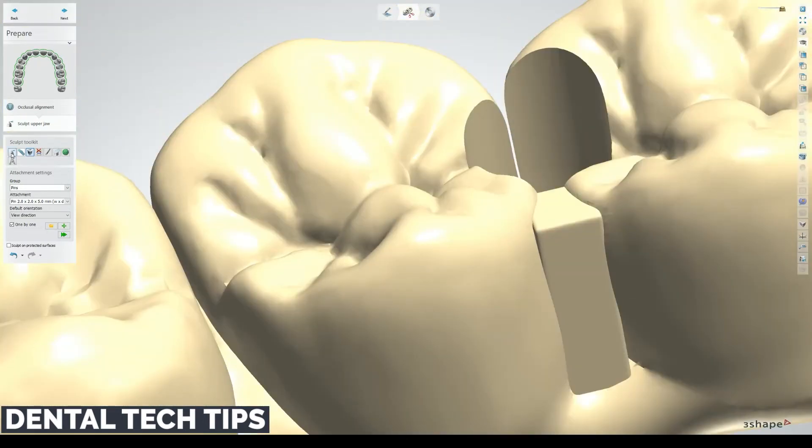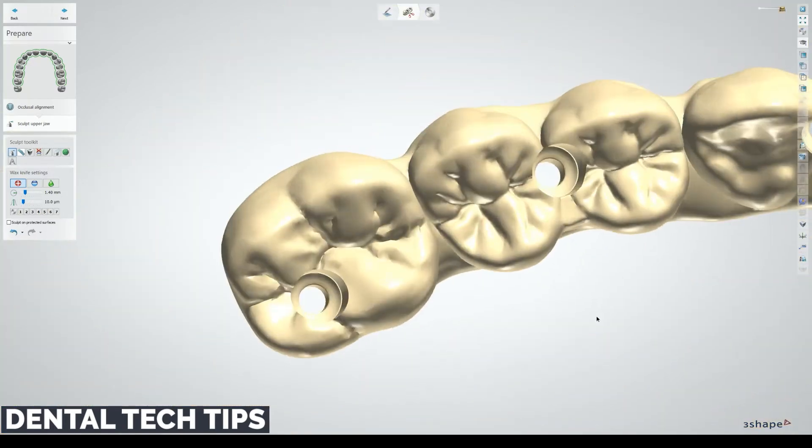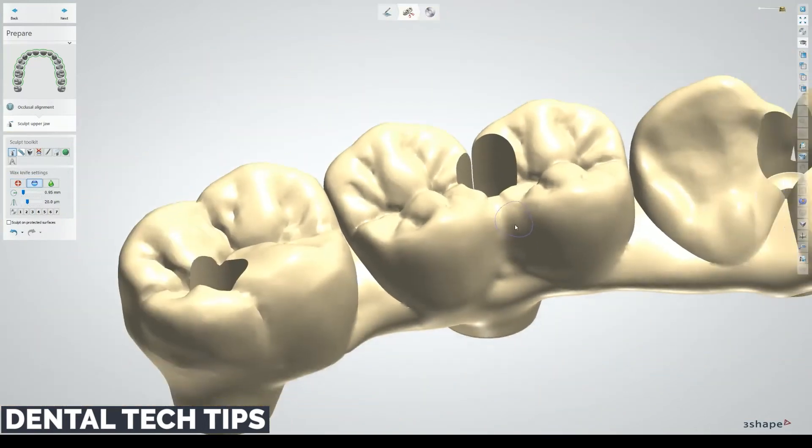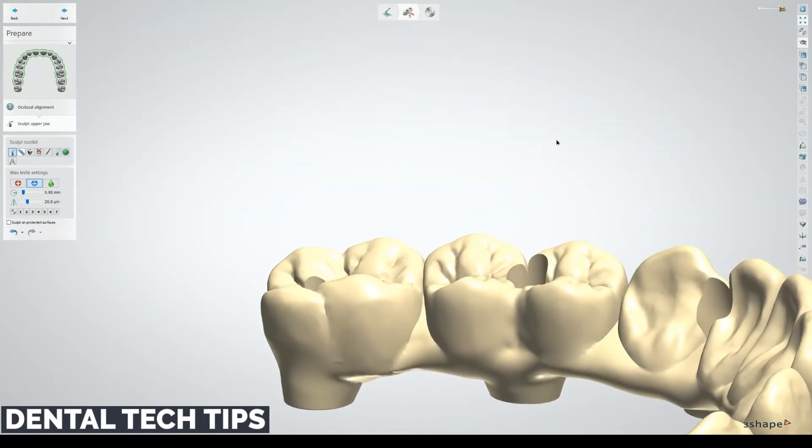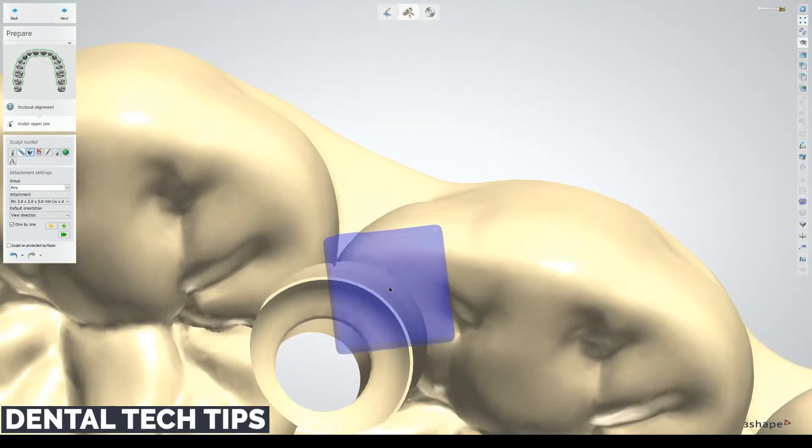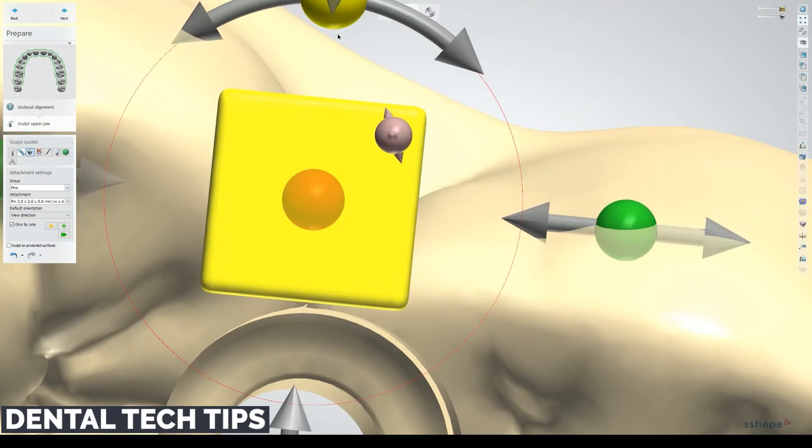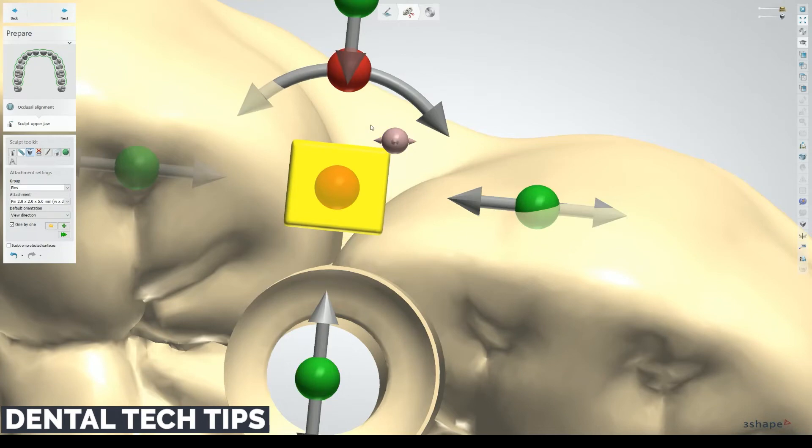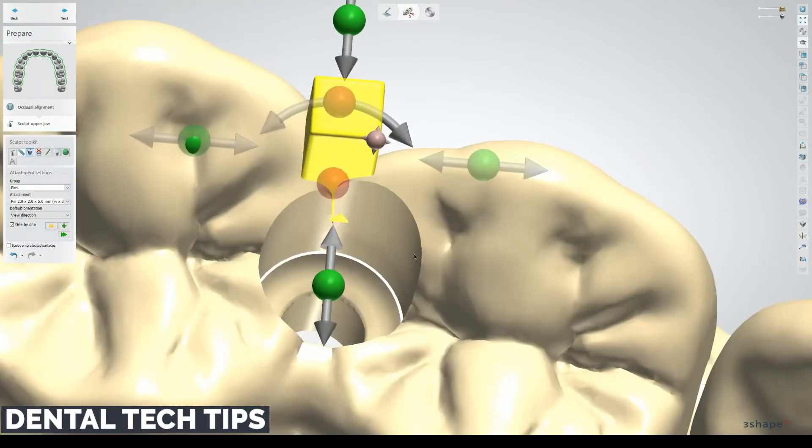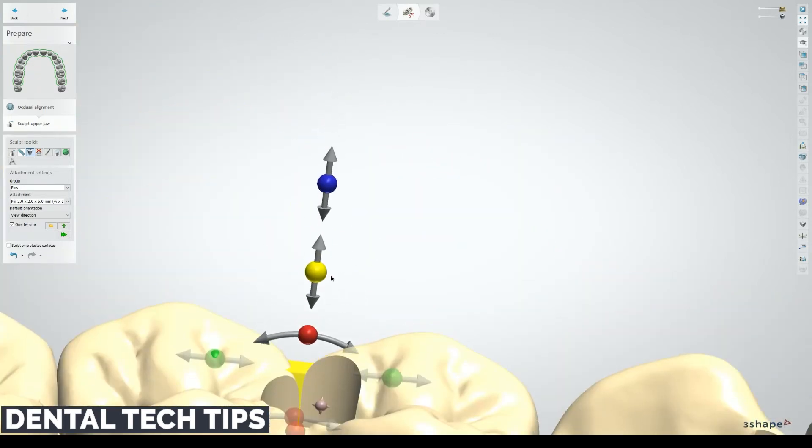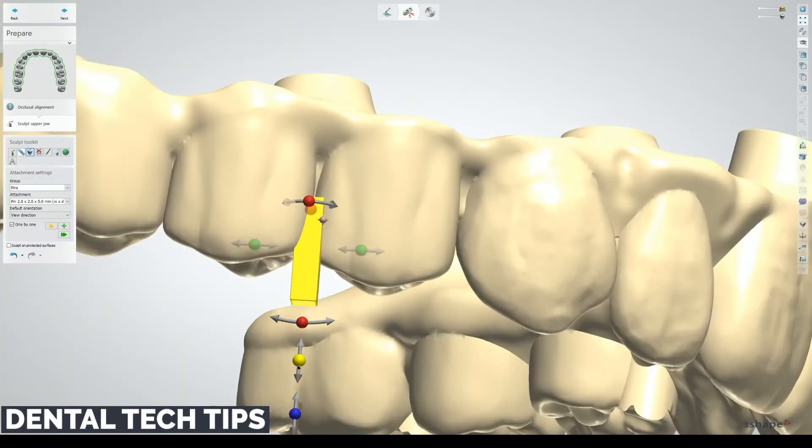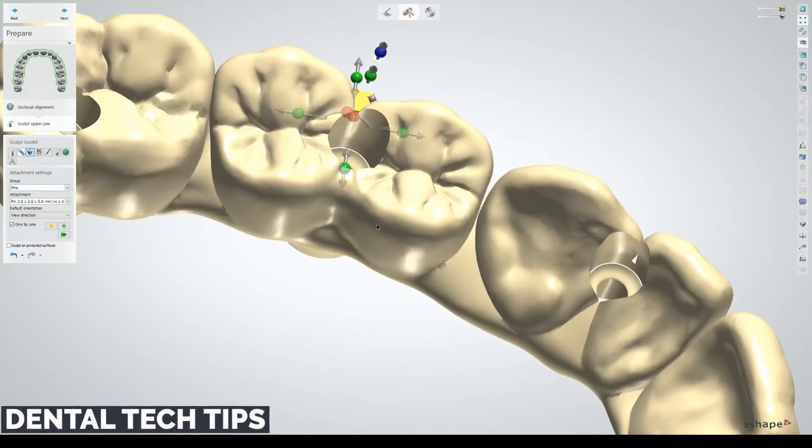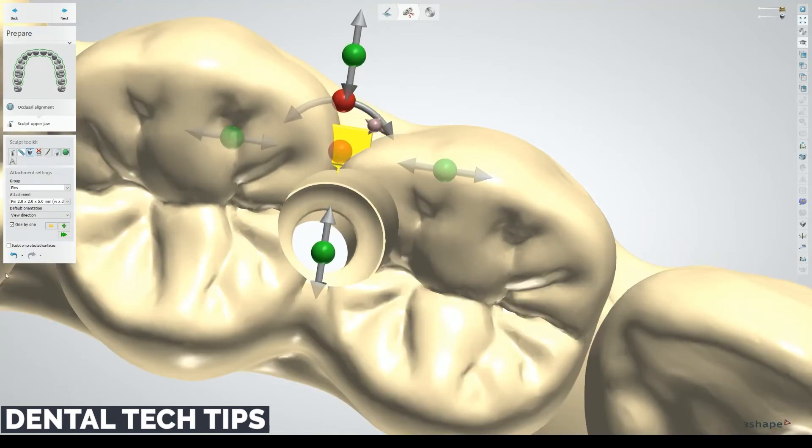And then we're able to sculpt. We can pull that out. We can subtract a little bit if we want to. This really is why copy denture is one of my favorite tools, because it allows you to do things like this. And again, we'll do one more pin, same thing, view direction from the front here. Put this here, rotate, scale as needed. Put that into place there. We'll back it up just a hair and drop it down. Press play.